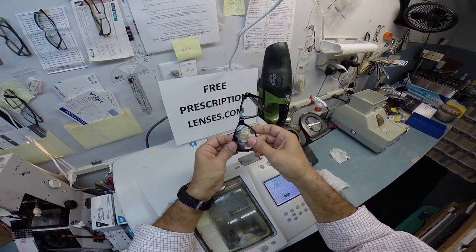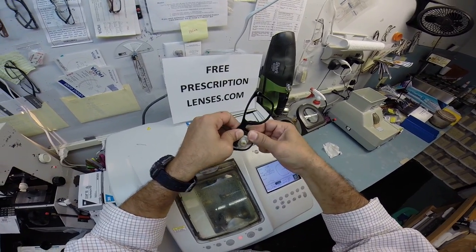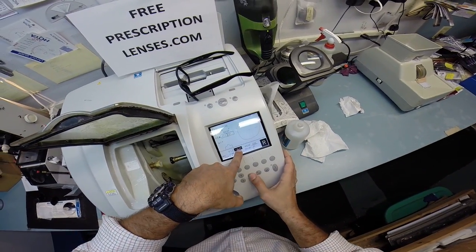I have the frame turned upright. I'm going to tuck it in at the outside corner, which is closest to me. And using my thumbs, I press down at the nose. No! It does not want to fit, so I'm going to take it down about a quarter of a millimeter.